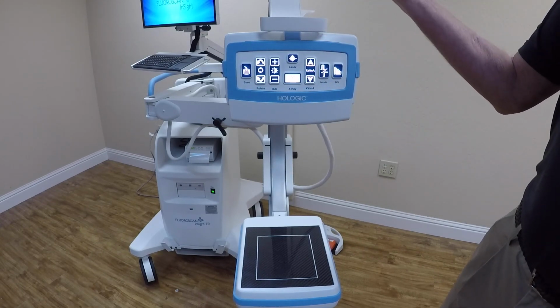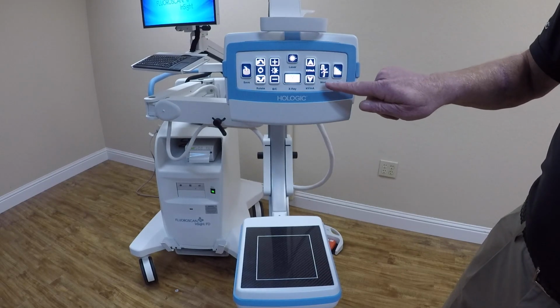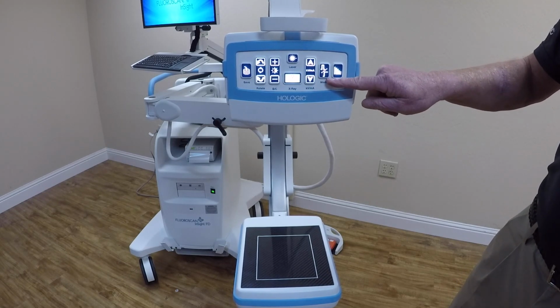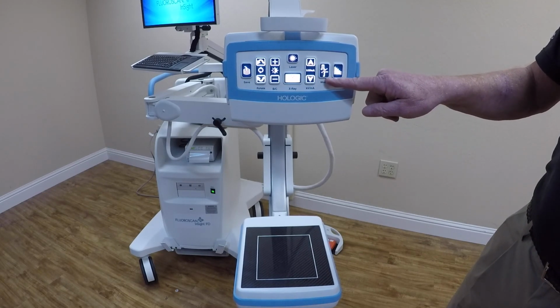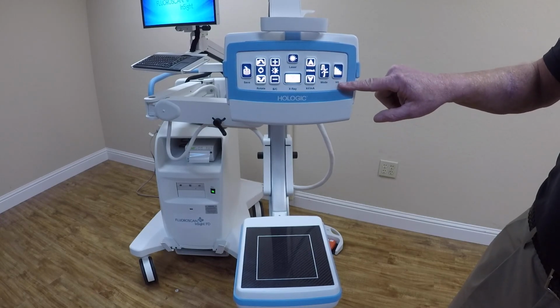As I will show you in a second with the auto, it's going to give you exactly what you want to use. We're going to use it in auto. Mode is turned off on this machine. It would give us cine. I turn that off for the operating room. If they want to do a live photo, we'll show you that in just a second. And your noise suppression is exactly that, going into live images.